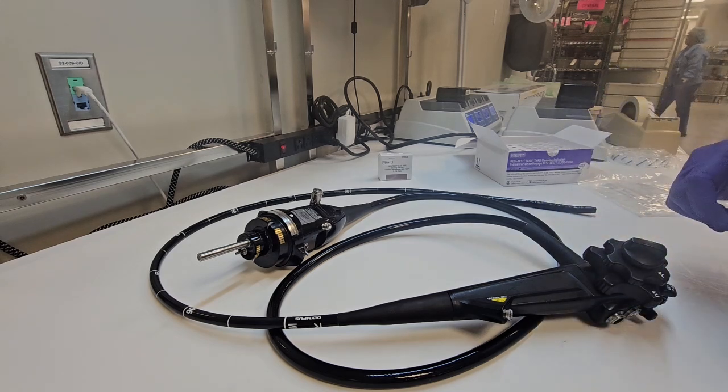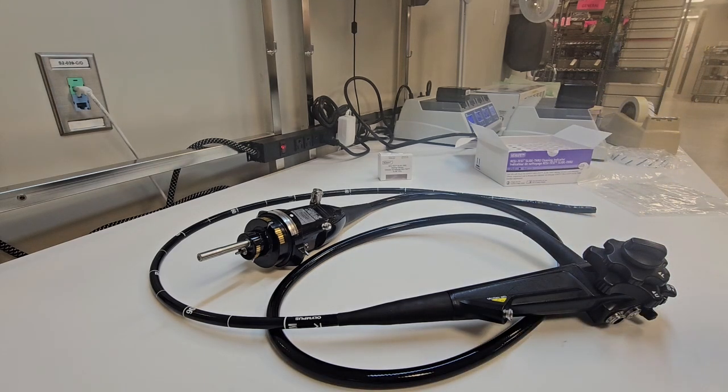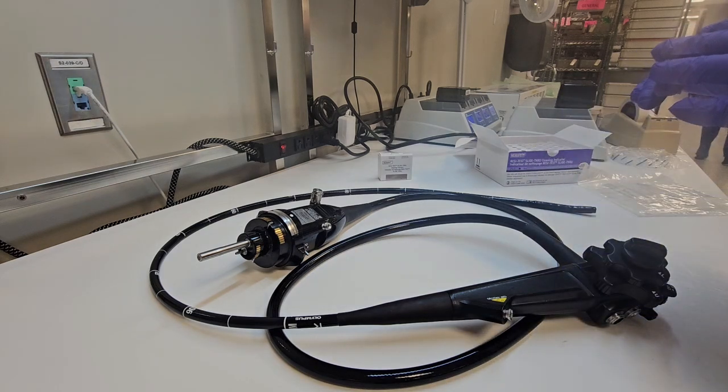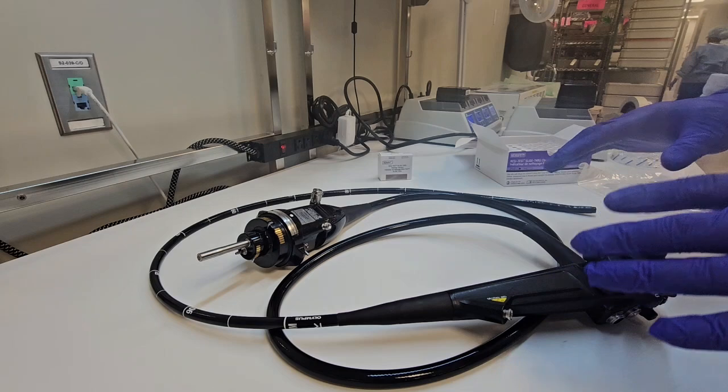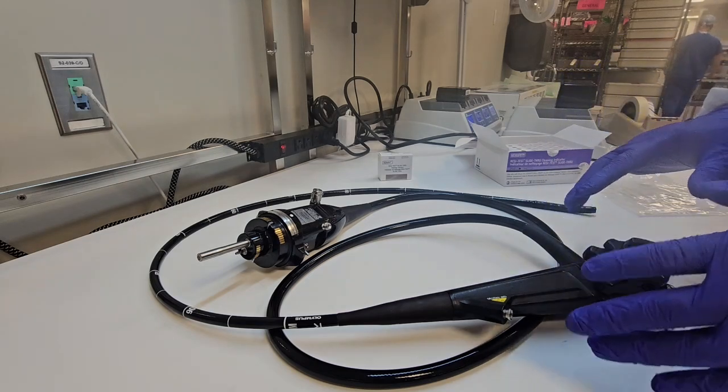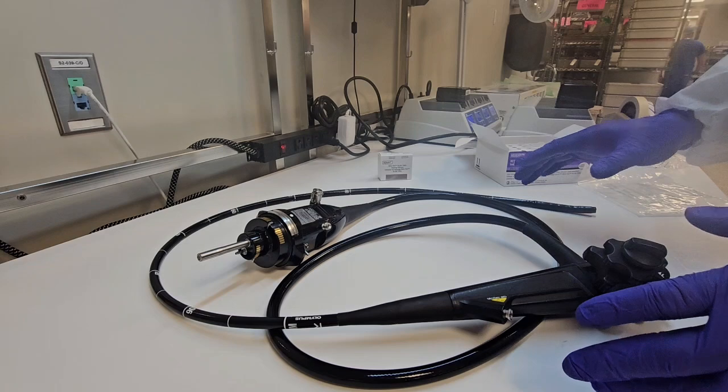After the successful manual cleaning of a flexible endoscope, you want to perform cleaning verification. AAMI ST91 gives us guidance stating that cleaning verification should be done on all high-risk scopes.